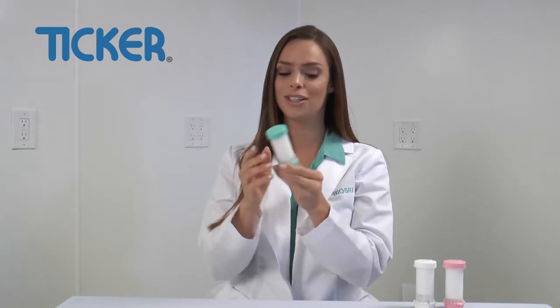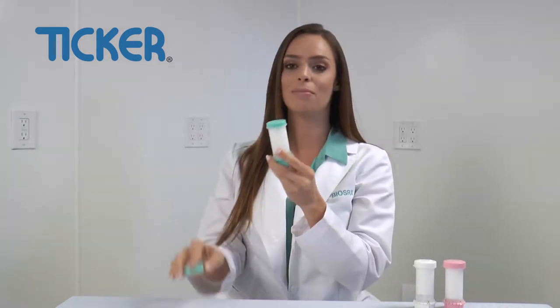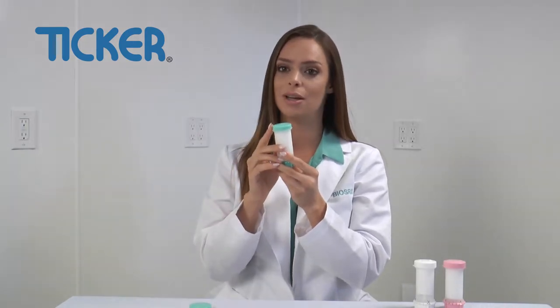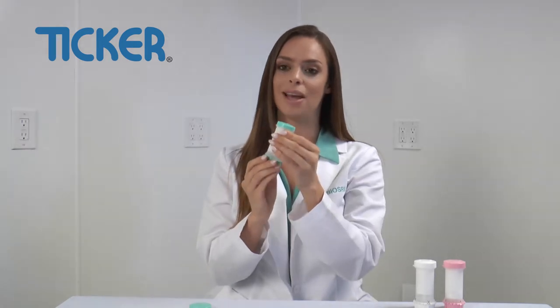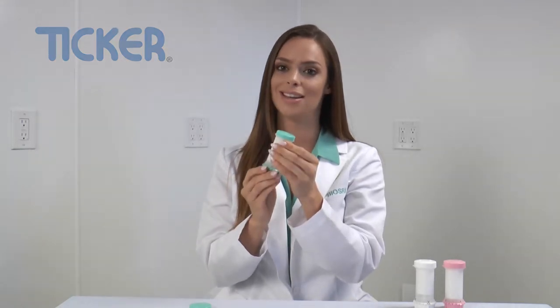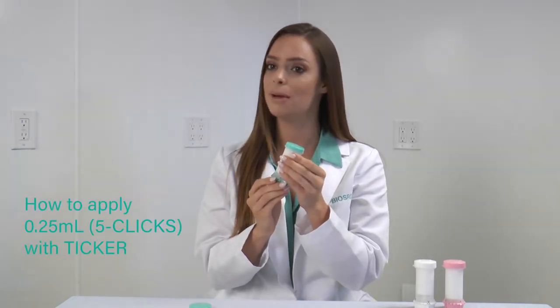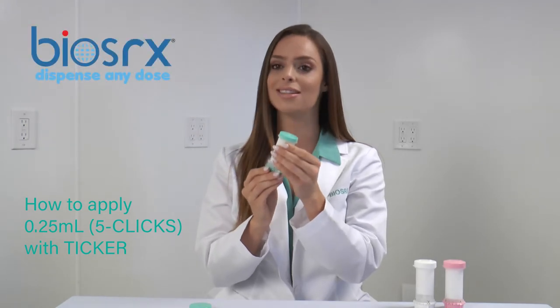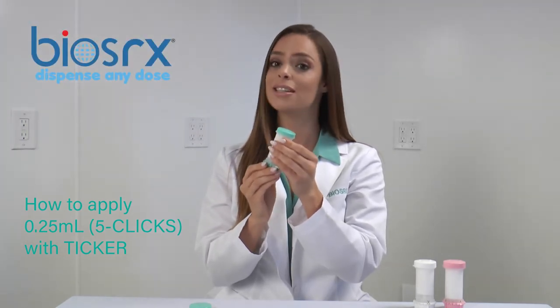So first, remove the safety cap. Your medication will dispense right at the top. Put your thumb on the thumb grip to turn the base clockwise. To apply a quarter ml, rotate the base by a quarter turn to the next thumb grip.